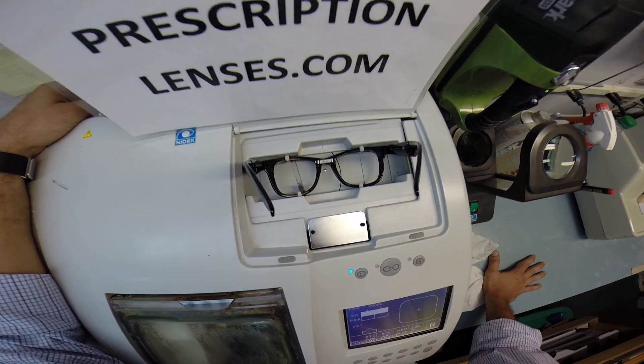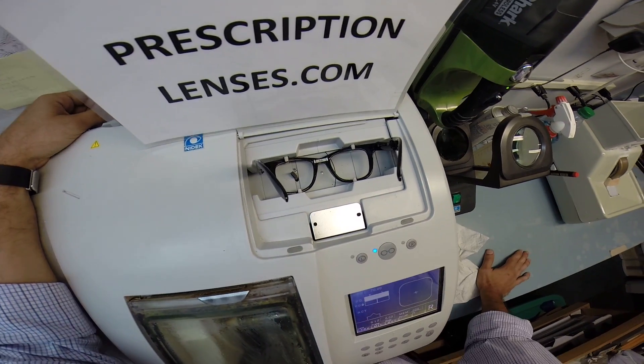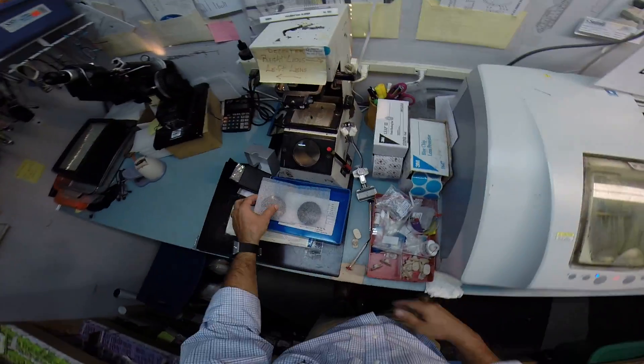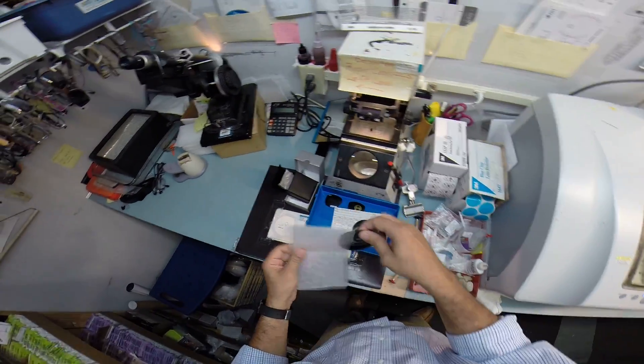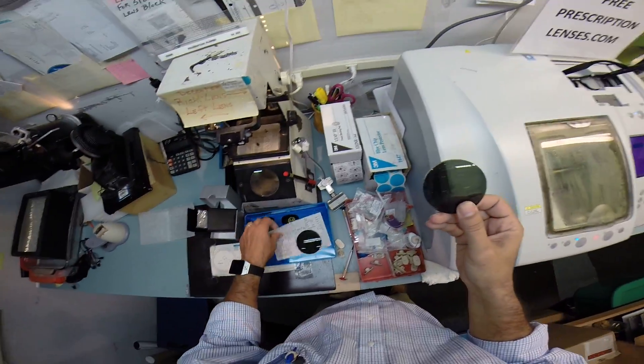Providing I slow it down so you can watch what's happening. You buy a genuine, authentic Ray-Ban frame and receive free, clear, single vision prescription lenses or non-prescription fashion lenses. But in your case, Randall, we are going to put your prescription in here. And all you paid, well, you paid $155 for the frame and you only paid $60 to upgrade to polarized lenses.